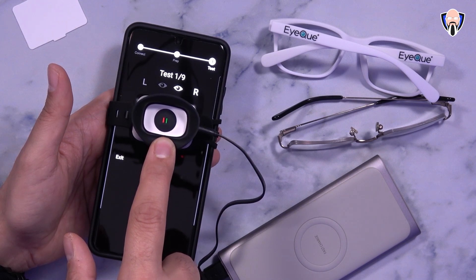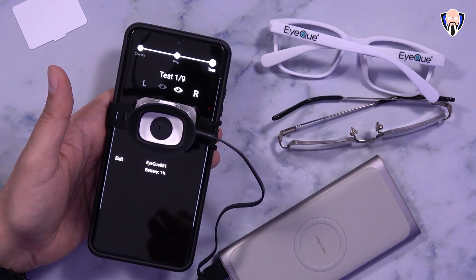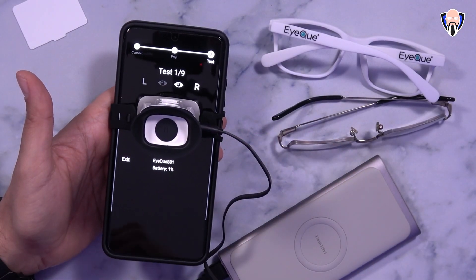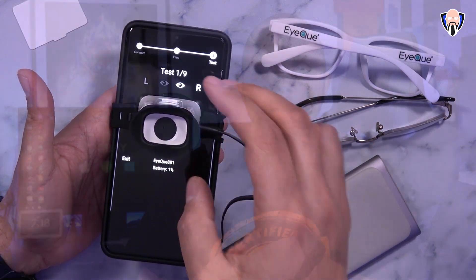What it's trying to do essentially is get the alignment correct with your eye. Once you have it set up, you bring it closer to the eye you're testing — in this case the right eye. At that point it's pretty simple. Once you have that there, you'll be able to use the buttons to get those lines to align. You do not want to close your other eye — just focus somewhere else and keep looking straight while you configure this one. What the actual tool is trying to do is figure out what the offset is for each eye — that's the general test, and that's why we're doing a test in each eye separately.